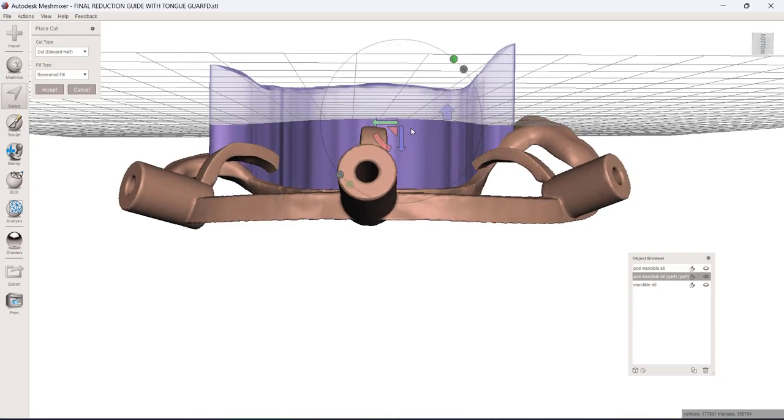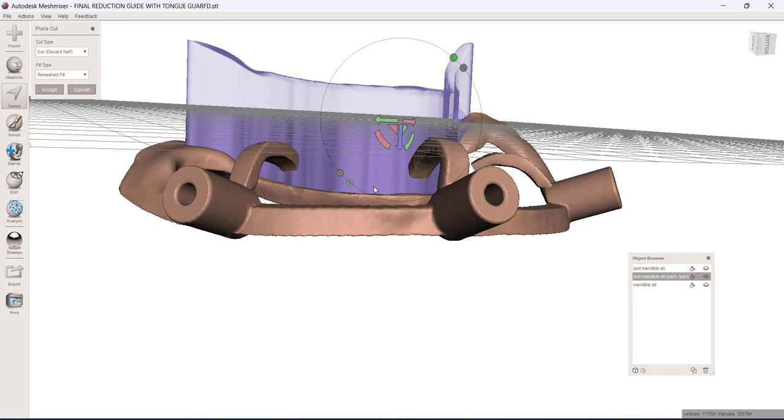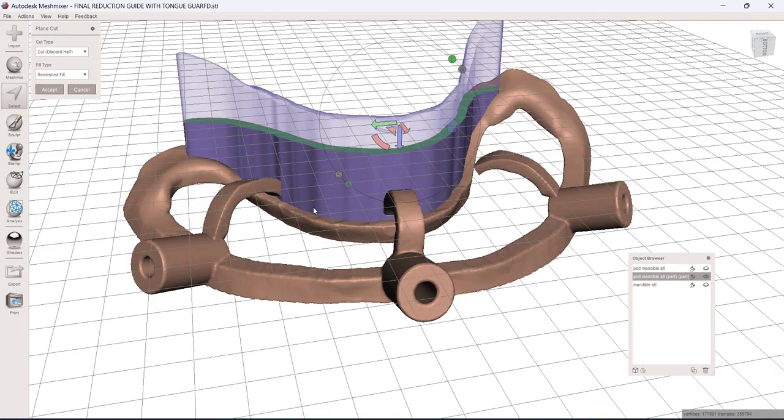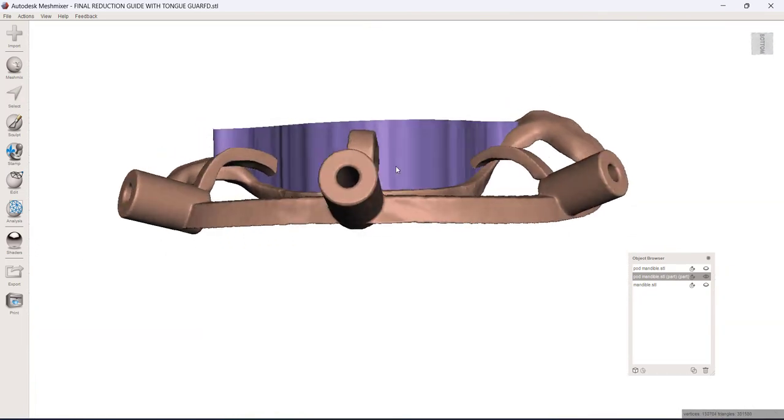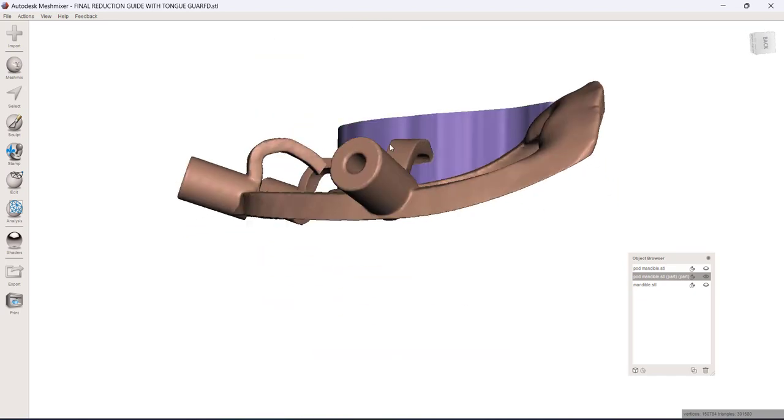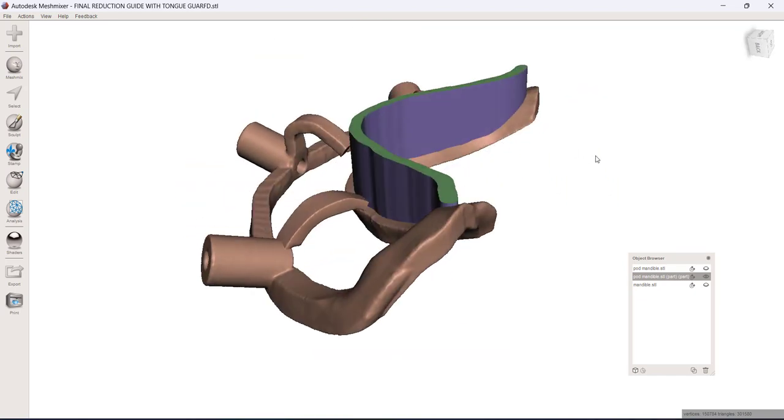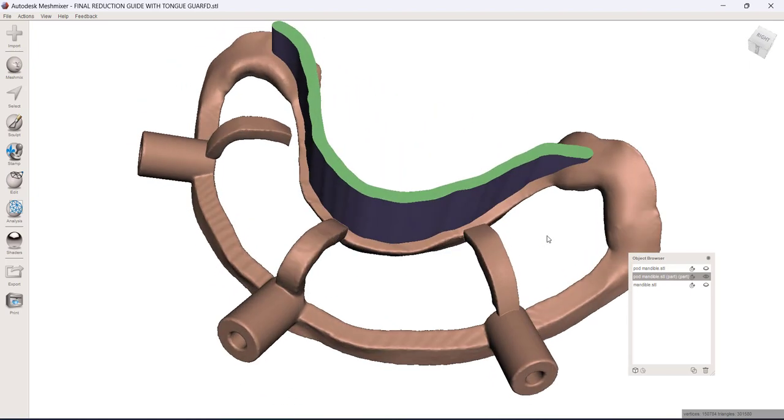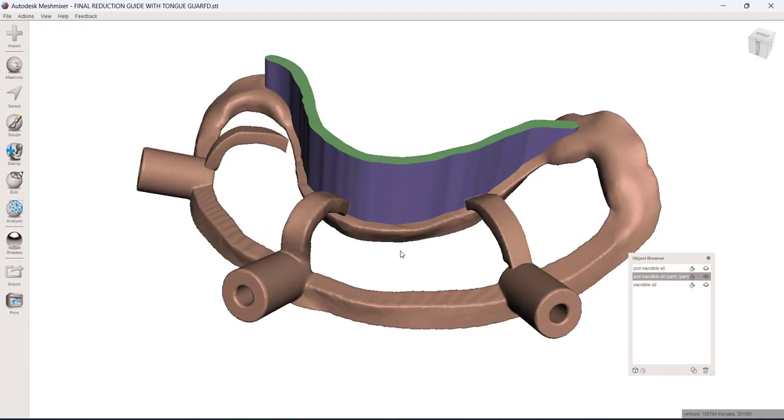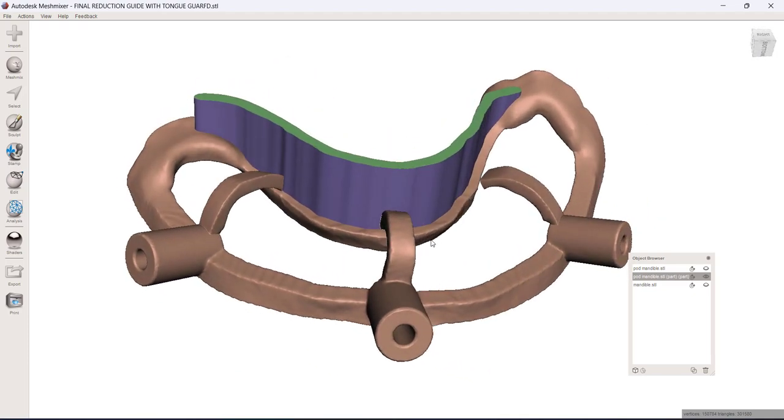And now we can bring this down where it's not going to be so bulky to fit in the mouth. You don't have to have a ton of retraction here. You're just mainly trying to keep it out of your surgical site. So just that amount right there is still going to be a relatively low profile guide, but that's going to kind of be a wall that the lingual tissue and the tongue bump into and basically stay behind. So it's going to be a lot safer during the bone reduction portion, not having to worry about wrapping their tongue or the tissue up in your burr. Plus it's just easier. It's just a simple method to keep everything retracted and to be able to do my bone reduction quicker without having those worries.